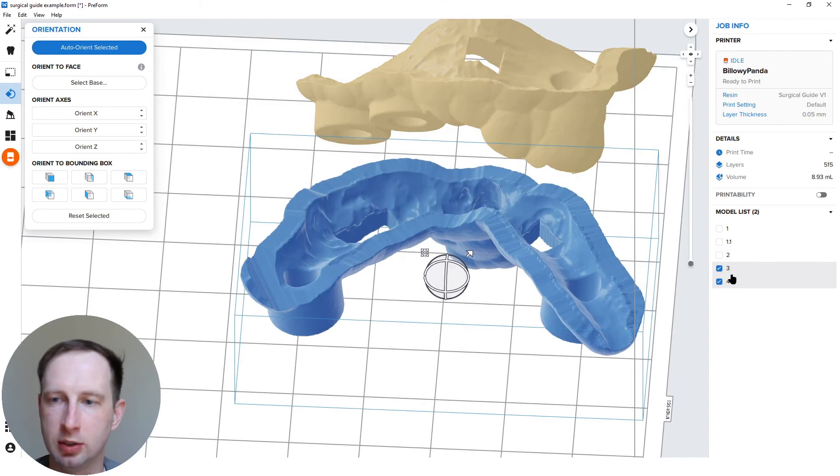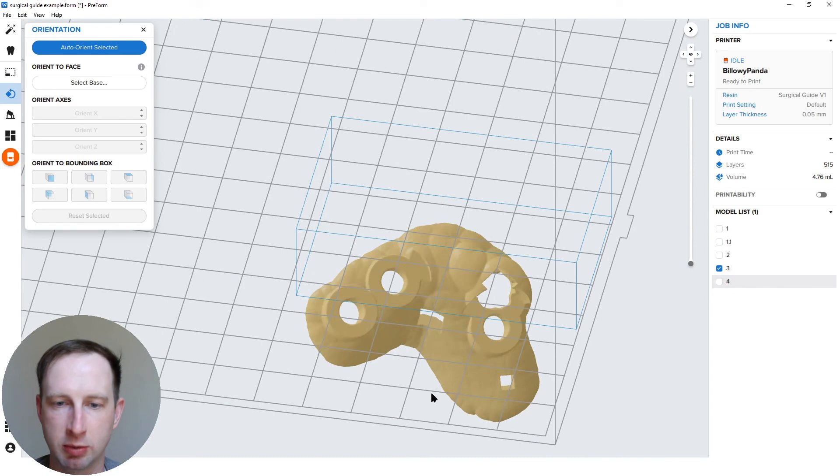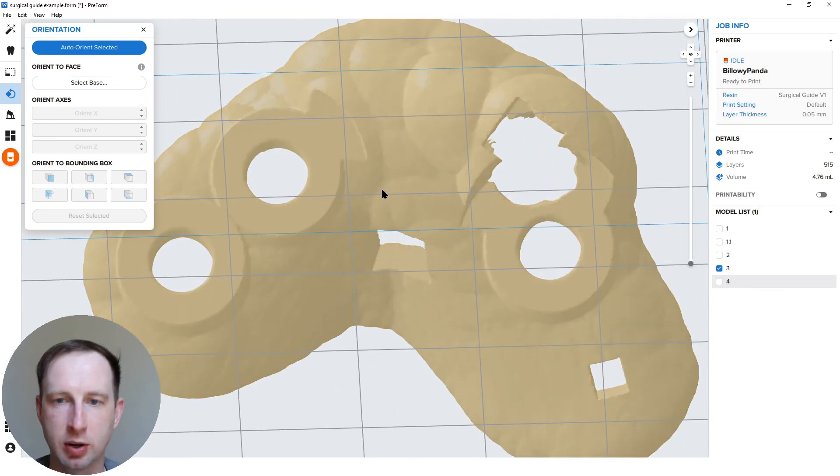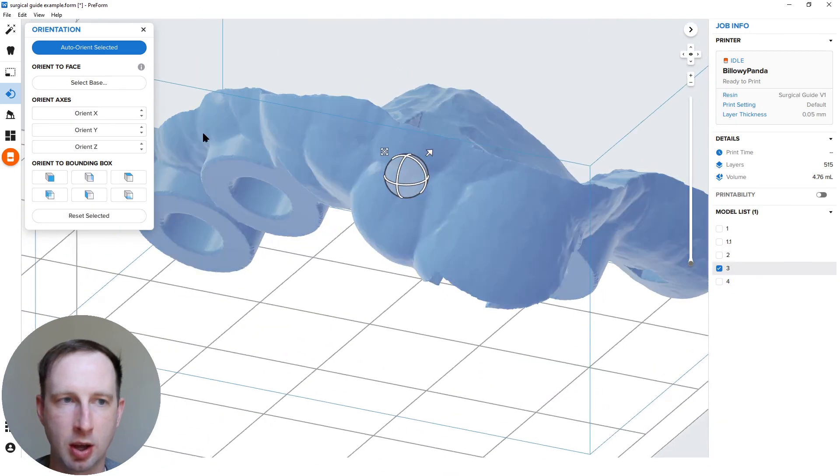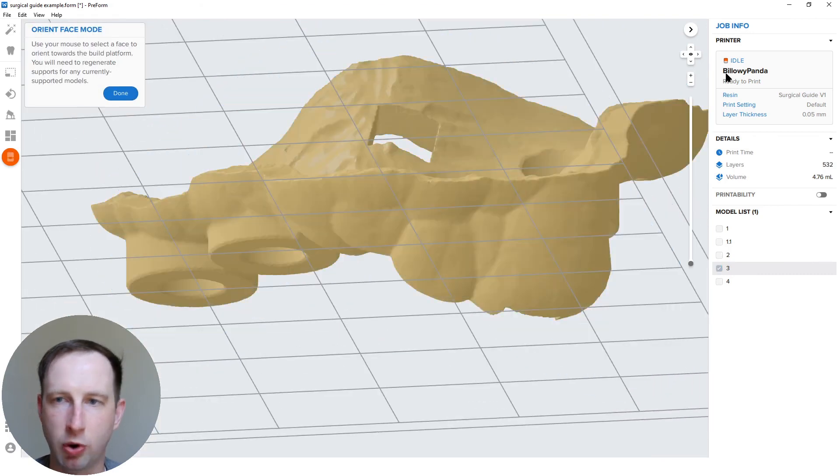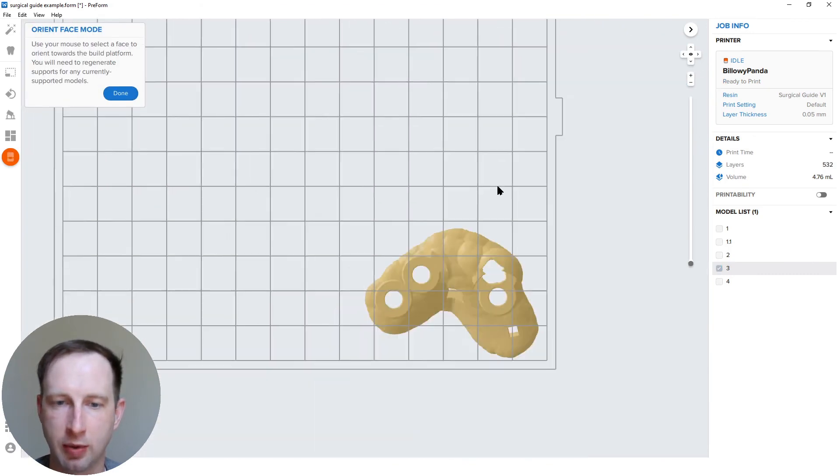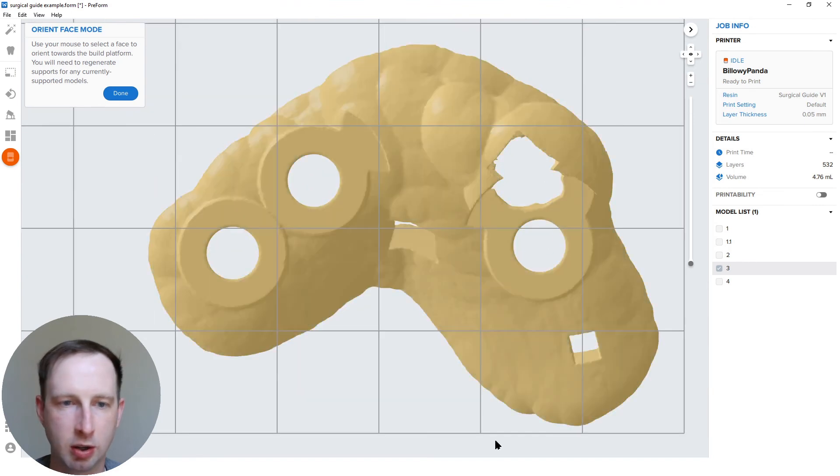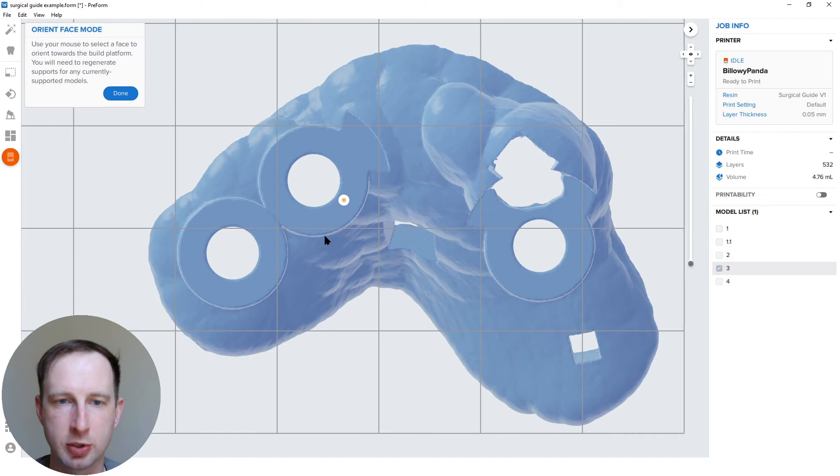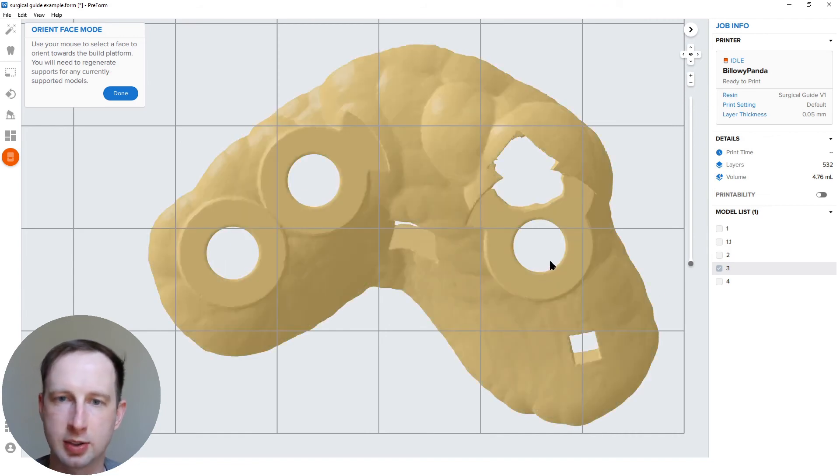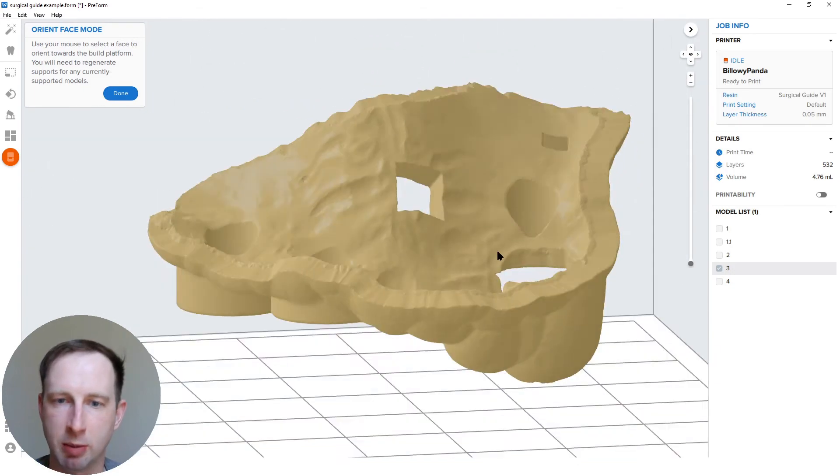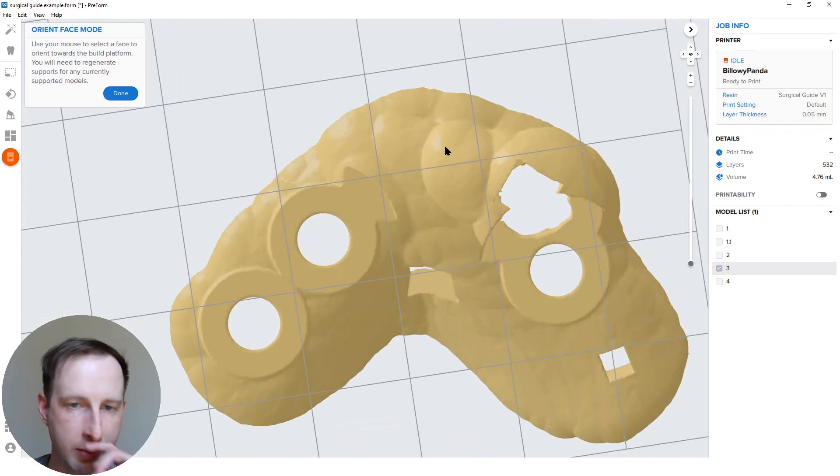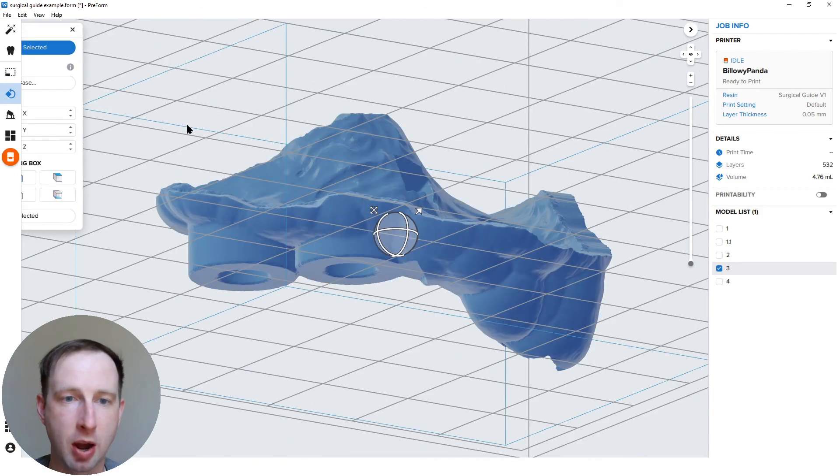All right, moving on. So I did, I think three is my last one here. I'm a little bit out of order, but this is another one. I'm going to again select base, grab one of my implant, the tops of the sleeves area here. This one worked out perfect. So I just clicked on the bottom surface here. All three of these are absolutely perfect. There must've been no sinus interference or nerve or anything. It's an upper probably. Yeah, it's an upper. So this one's great. So that's done. Generate supports from here.